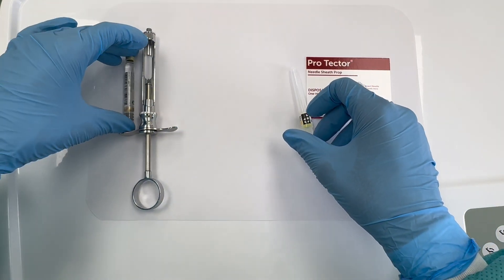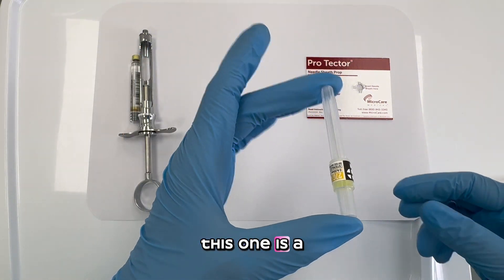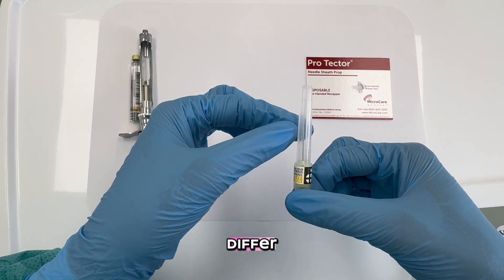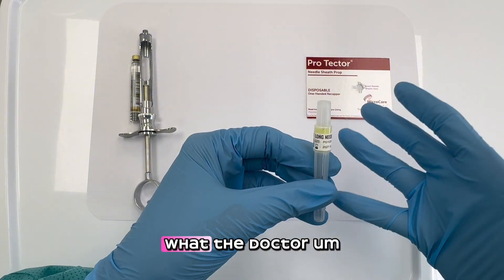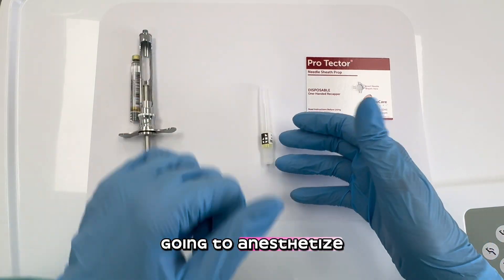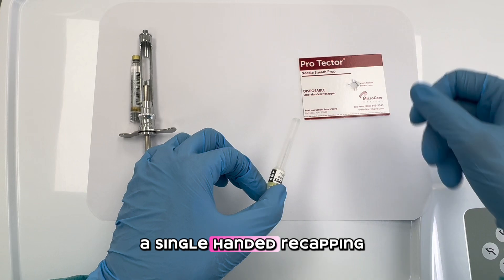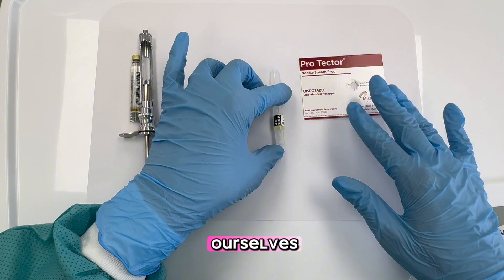Now this is the needle, and they come in different sizes. This one is a long needle — there are long needles, short needles, and pediatric needles, and the gauge may differ. It will all depend on what the doctor wants or the area being anesthetized. And this is the protective sheath for the needle, so we can do a single-handed recapping to avoid pricking ourselves.